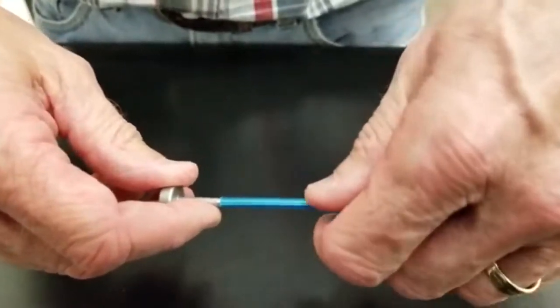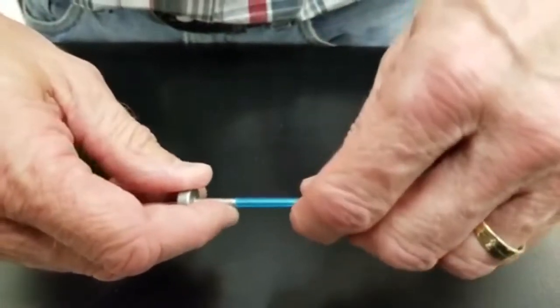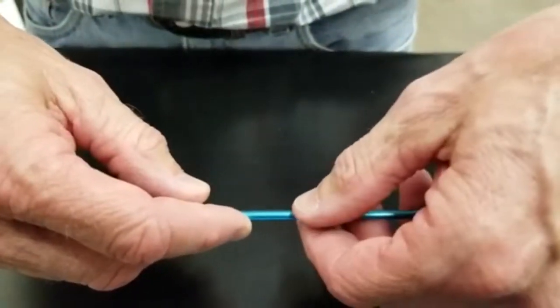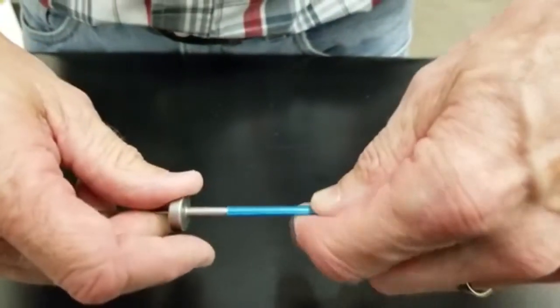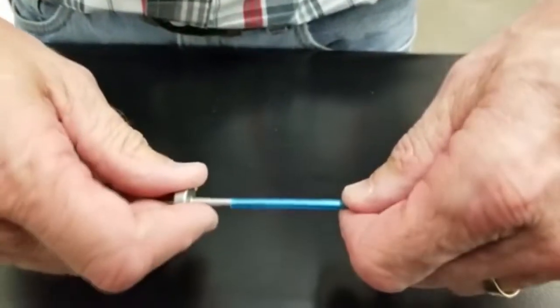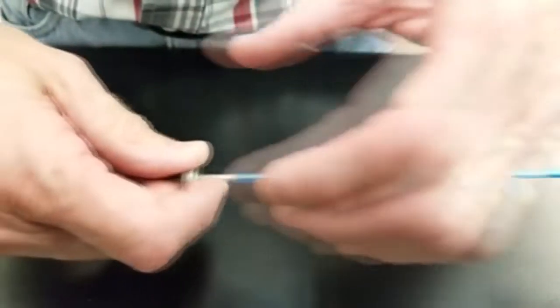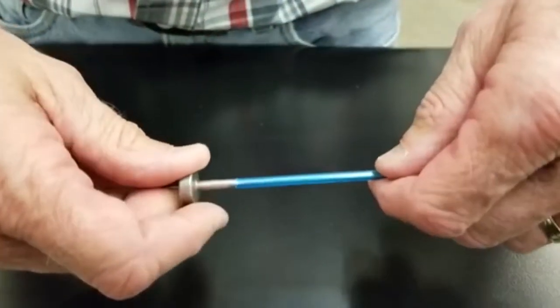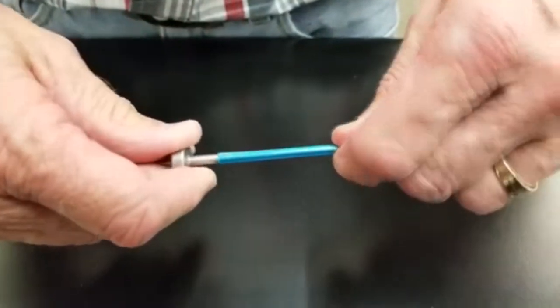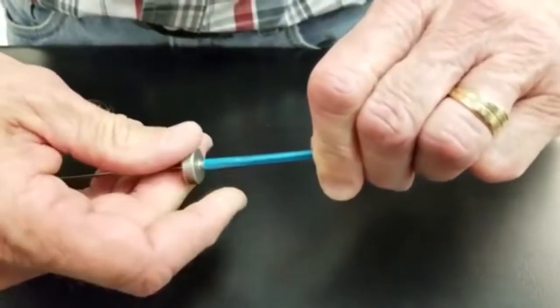At this point, instead of just pushing straight down, it's preferred that you grasp onto the sheath and, as you compress to break the flange — to break that opening — rotate towards you. Rotate the sheath towards you as you compress. As you rotate towards you, it breaks free in a little bit of a rotation twist like that.